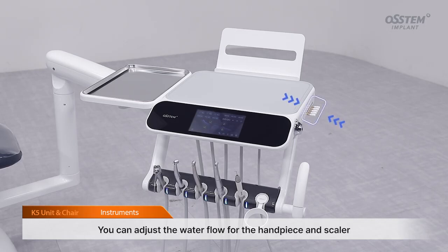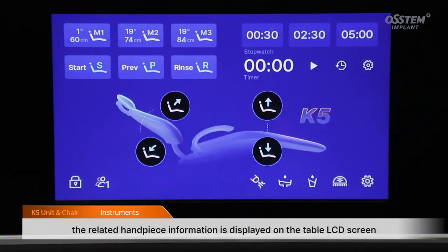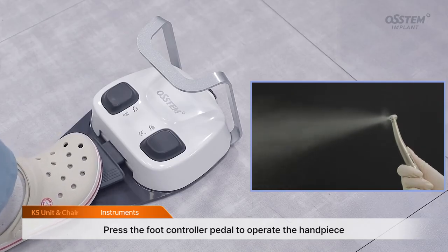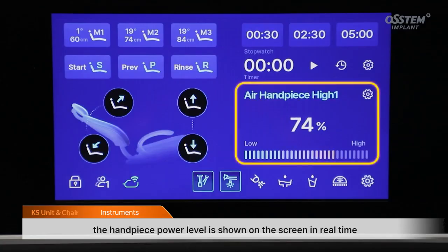You can adjust the water flow for the handpiece and scaler in the same way as the three-way syringe. When you remove the high-speed handpiece from its holder, the related handpiece information is displayed on the table LCD screen. Press the foot controller pedal to operate the handpiece. While it's running, the handpiece power level is shown on the screen in real time.